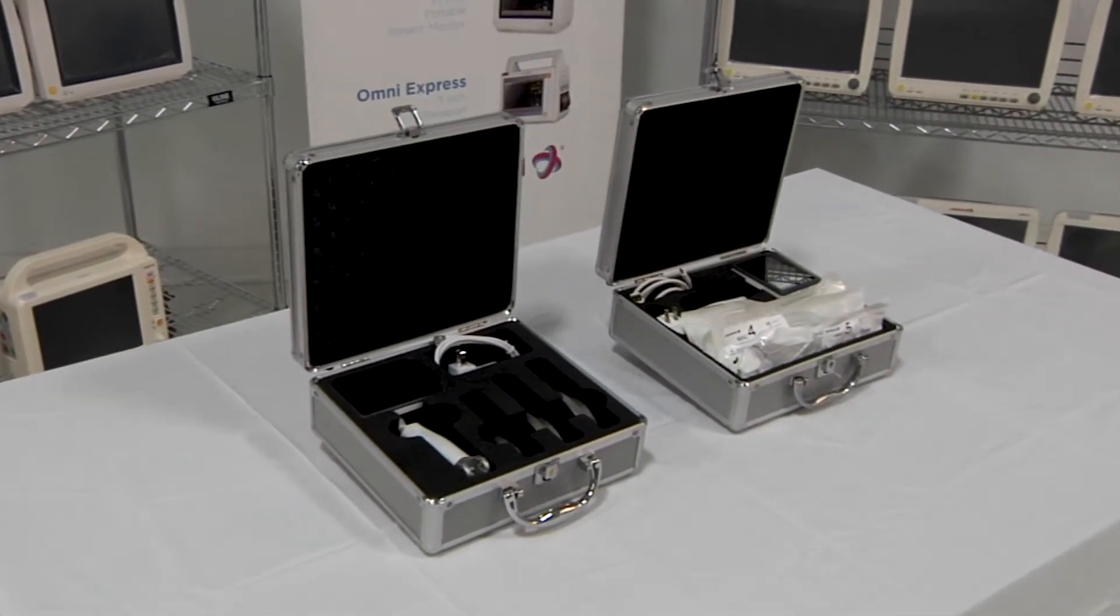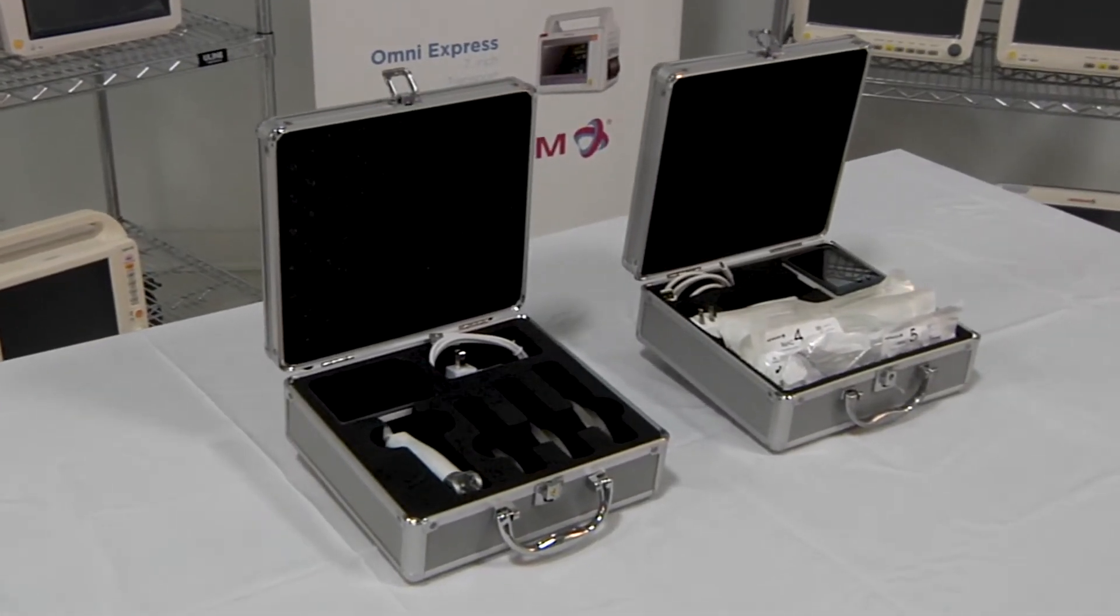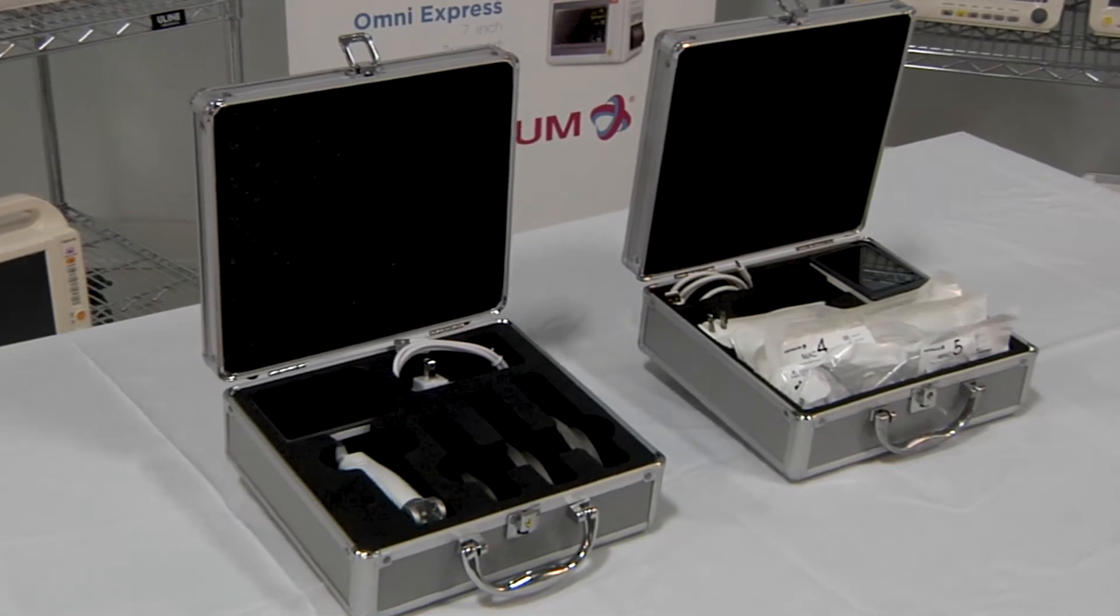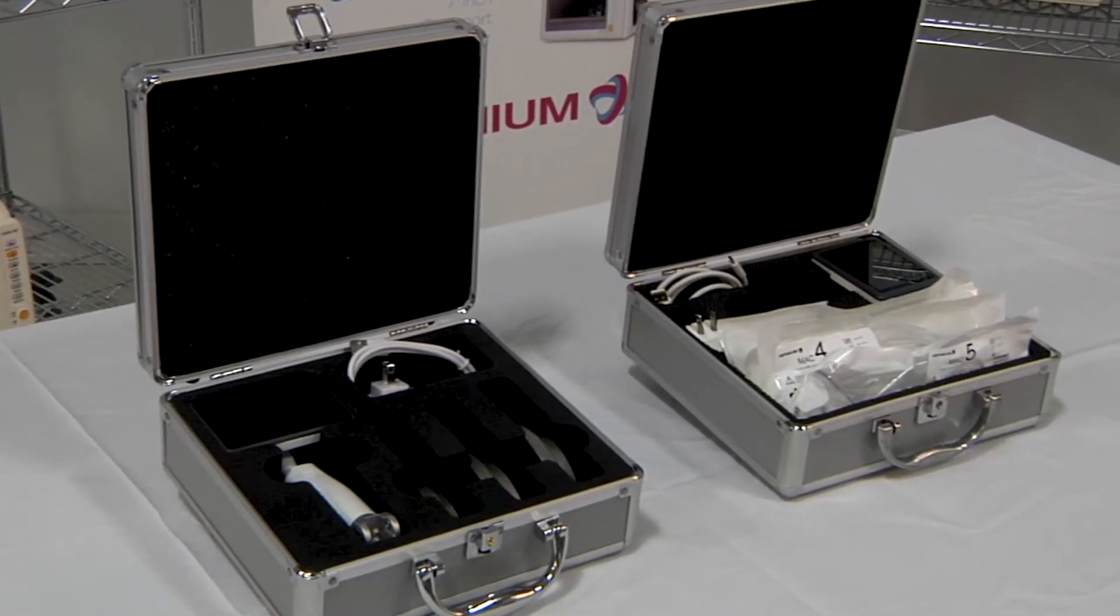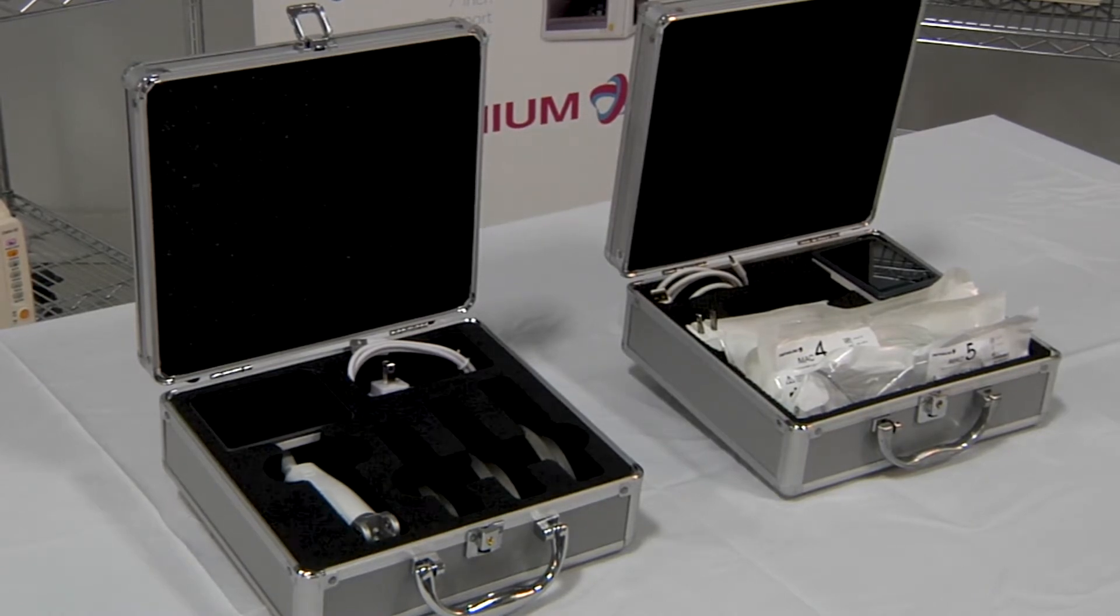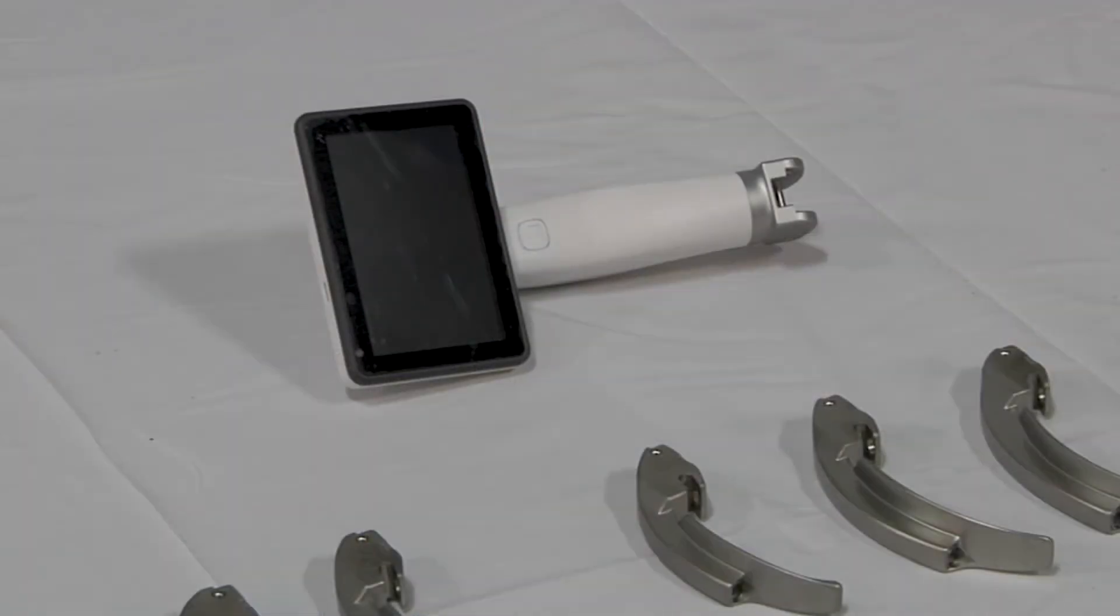This is the Infinium Clearview Laryngoscope. We have a 4-inch display laryngoscope with reusable blades and a 4-inch display laryngoscope with an attached blade which uses disposable blade covers. This is the main unit of a laryngoscope using reusable blades.